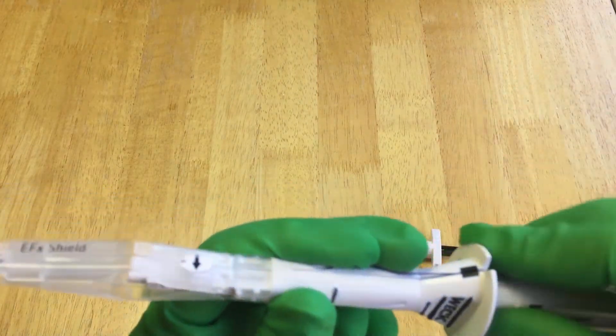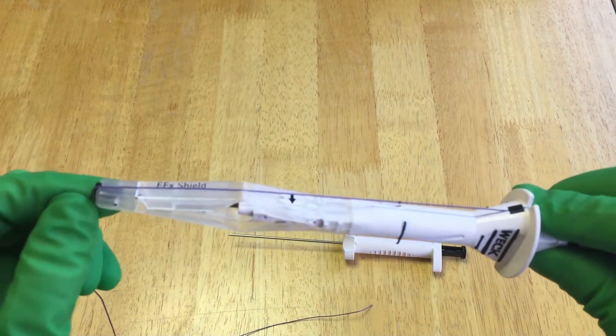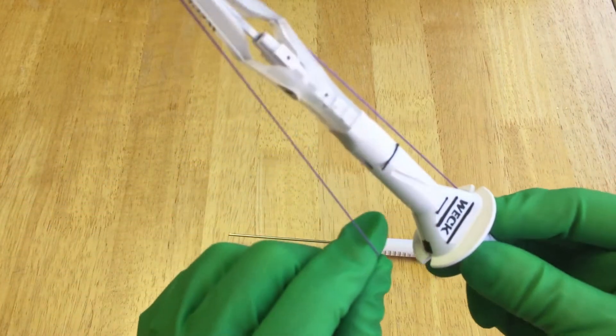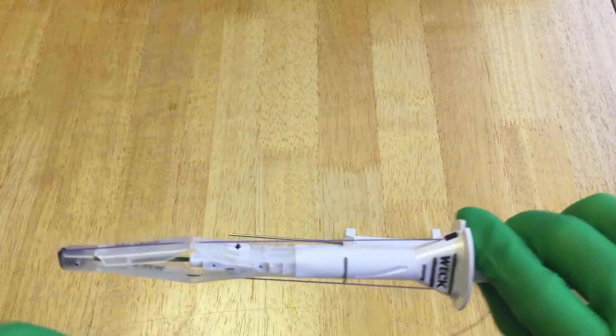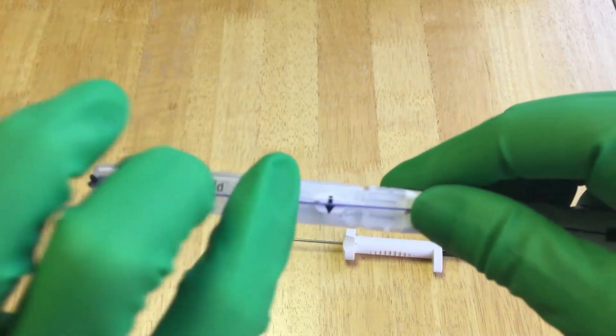So you lay it in there and then before you go to this middle one, go over the end and then go through to the other side. And then it has to go behind these little arrows here.